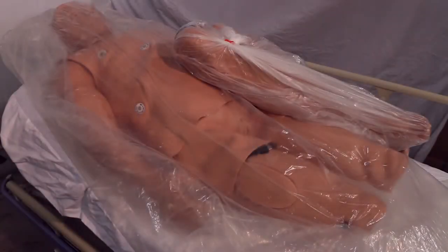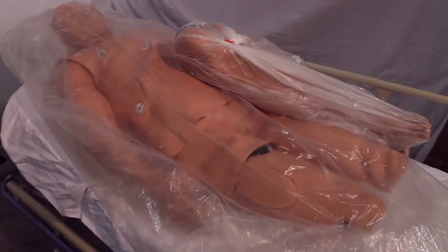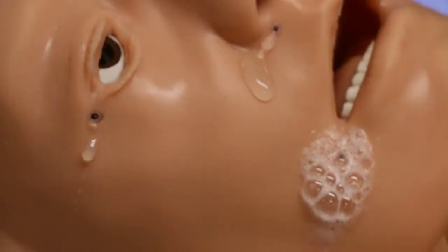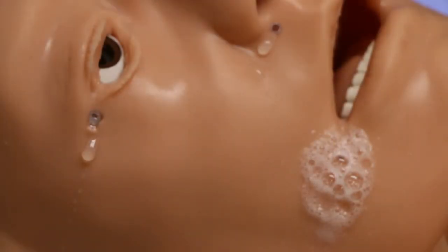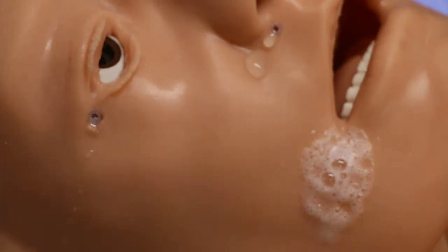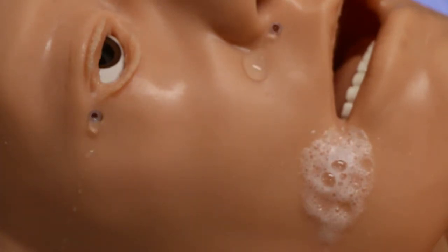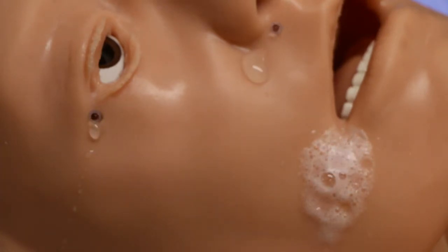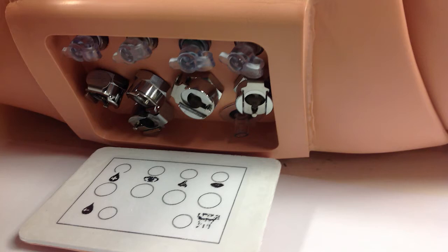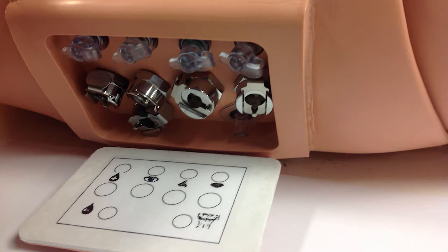This is a head-to-toe review of the SmartStat system. Head features include fluids for the eyes, nose, and foaming mouth, controlled independently. Fluid-filled ports for the internal fluids are located on the top of the right shoulder.